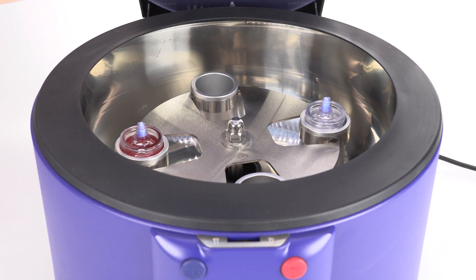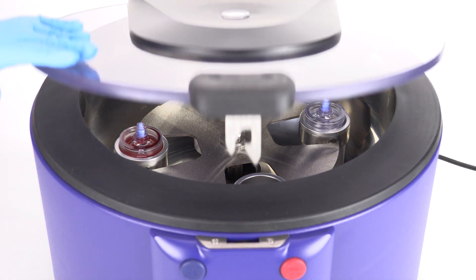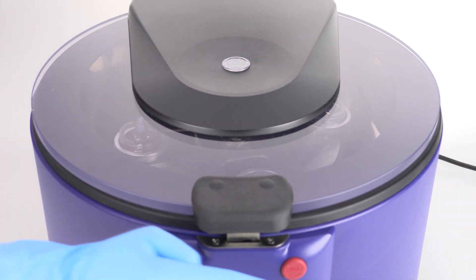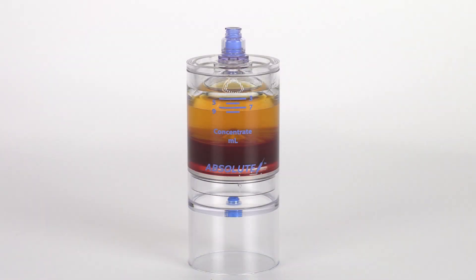Follow the protocol settings provided in the Absolute PRP insert. Close the centrifuge lid and press start.